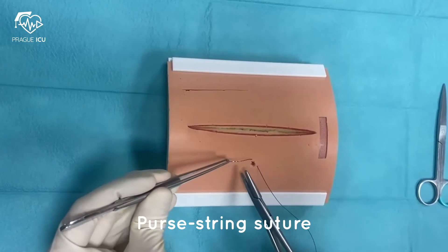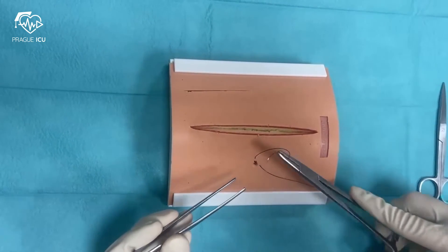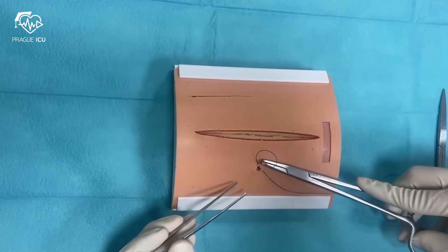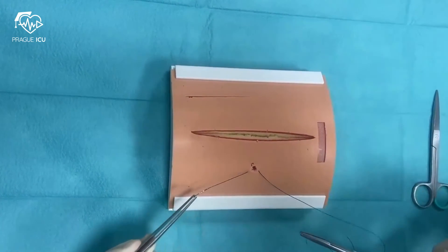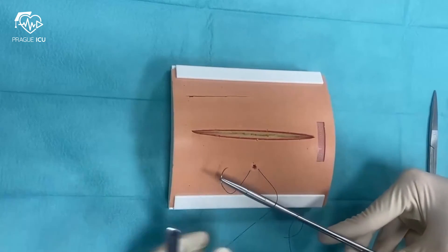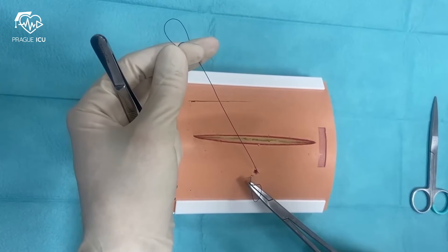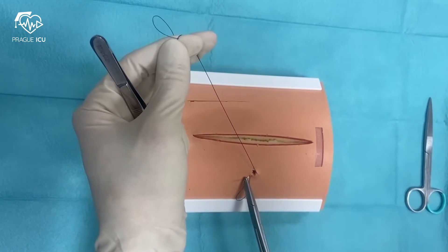The purse string suture is a technique to either shrink the size of a defect or close it entirely. It can also be used to reduce or stop bleeding around central venous catheters or cannulas. It's a form of running stitch with the thread running in and out along the edge of the circular wound.